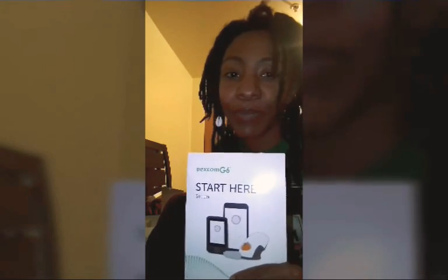There are lots of nights you stay up because you're too afraid to go to sleep, watching over your child. This device will kind of give you that mental break — I'm so excited to see what it's all about. I know it's not going to be perfect, but I am excited for this new journey. Are you excited? He's excited! Anyways, we'll get back to you all later — see you, thank you!